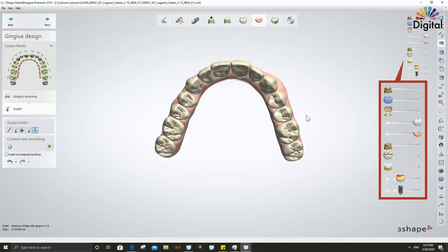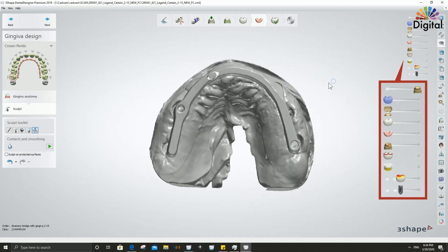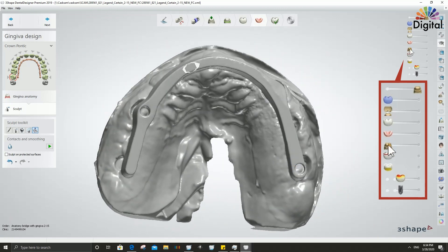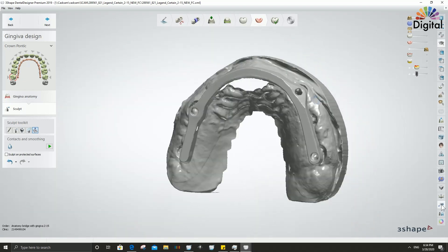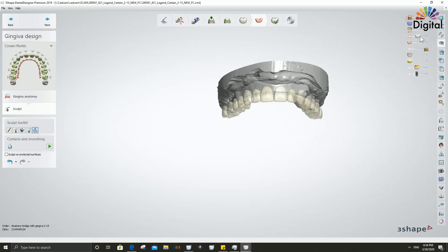When you get to the final lines, I have an attachment for creating a screw channel on the base of the implant. Sometimes the screw hole cannot be seen well for that region, so I import another scan which shows the screw channel coming up nicely. I use the additional scan function a lot — it's in the right bottom. With that, all the design is done.